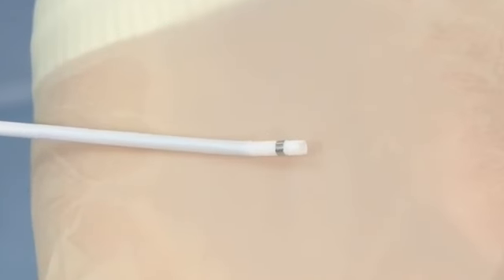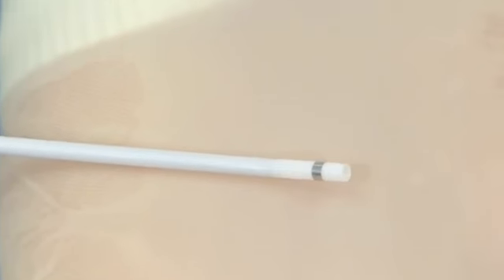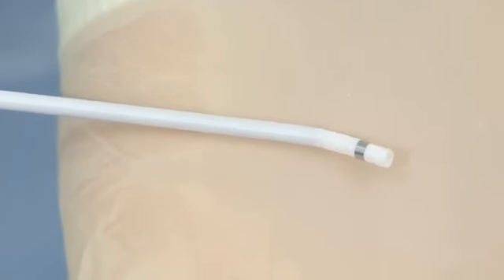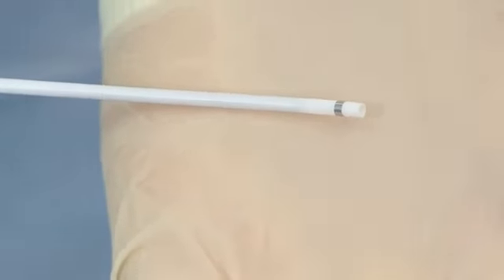The Snare kink-resistant guiding catheter includes a radiopaque band that is easily visible during fluoroscopy. The 6 French and 7 French Snare catheters are designed with a unique 15-degree angled tip, allowing them to be steered during placement. The Snare system is available in 7 product configurations with overlapping diameters to accommodate a broad range of vessel sizes in the body.